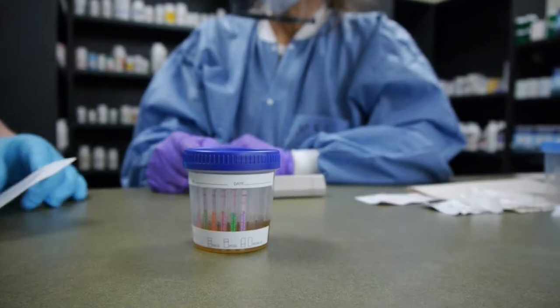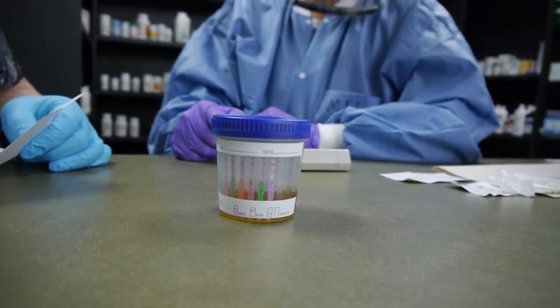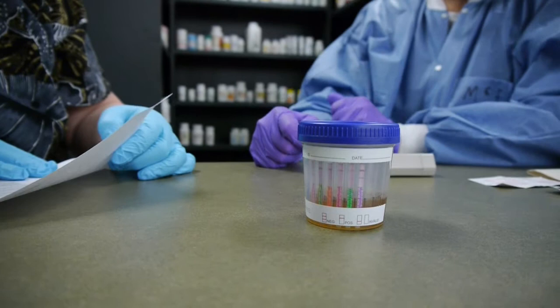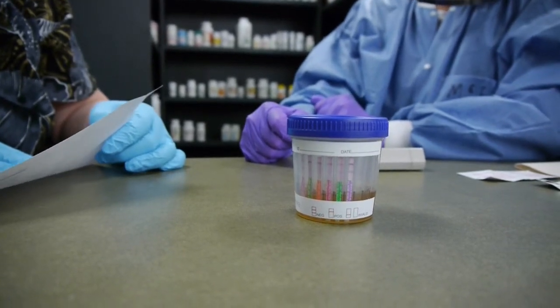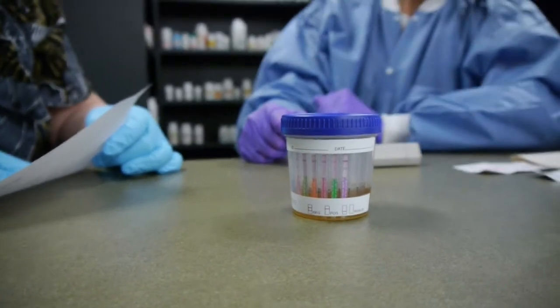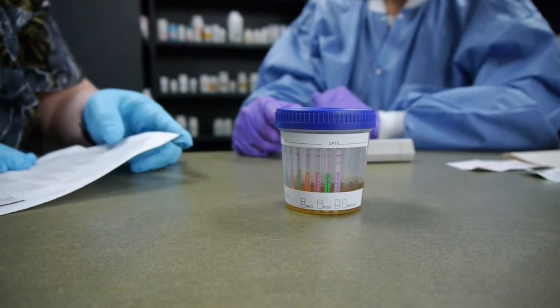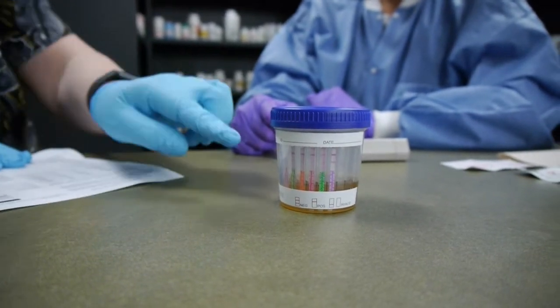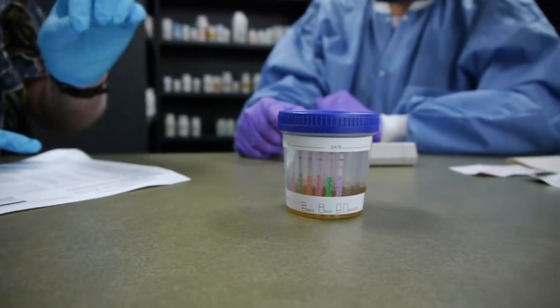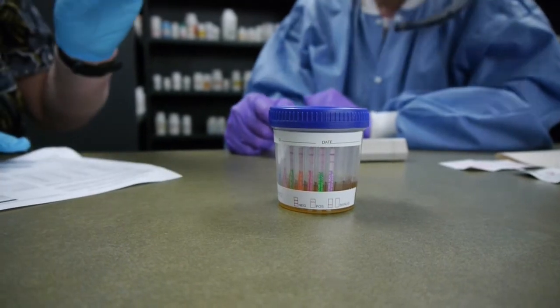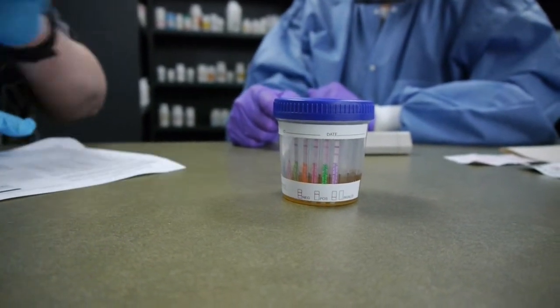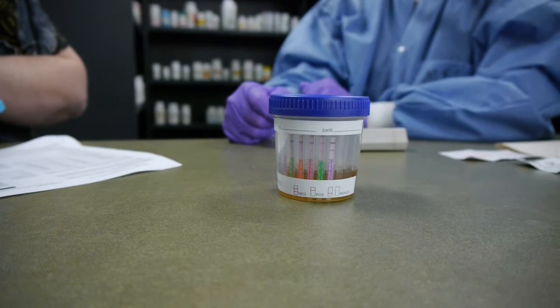You have amphetamines and morphine and oxycodone among others. Each of these strips has the appropriate antibodies against the drug that is being detected in the urine.